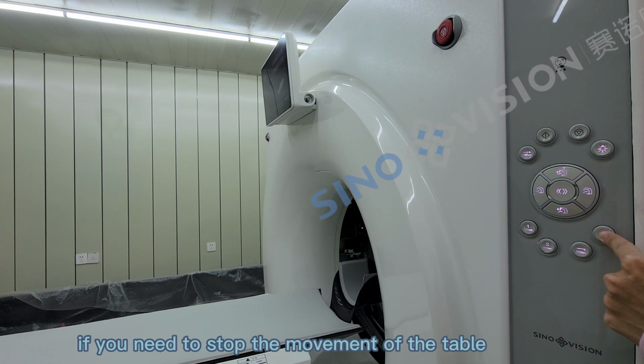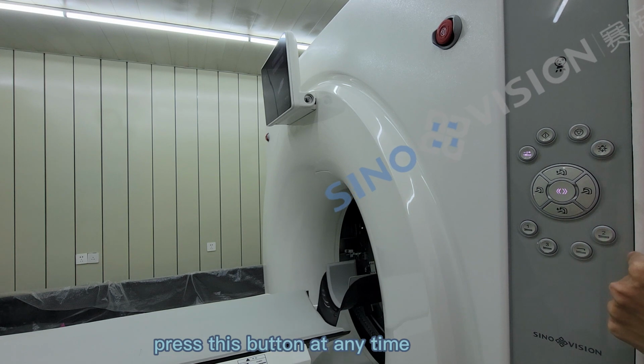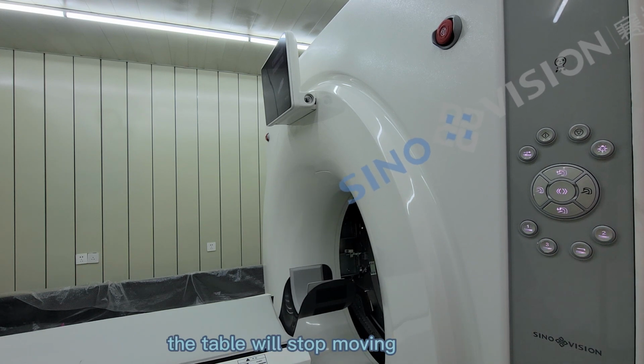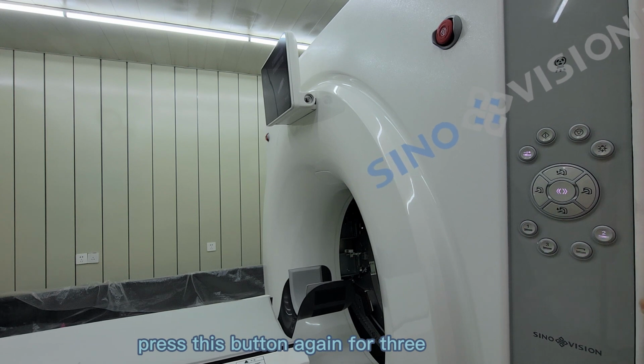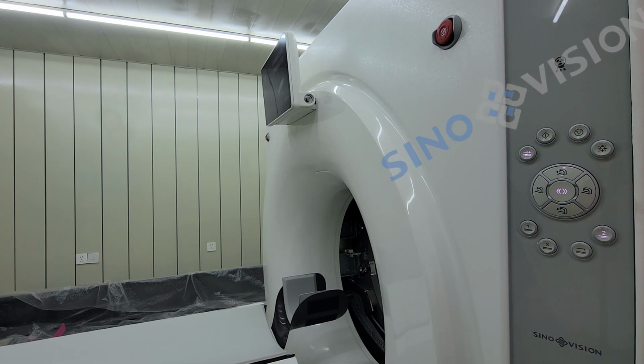If you need to stop the movement of the table, press this button at any time. The table will stop moving. If you need to continue moving the bed, press this button again for 3 seconds and then release it.